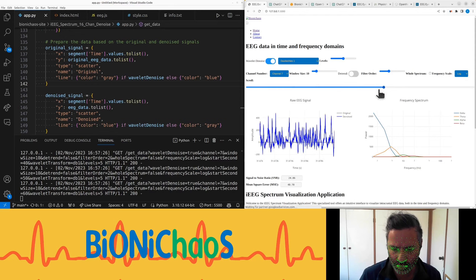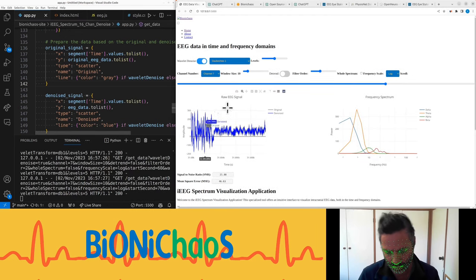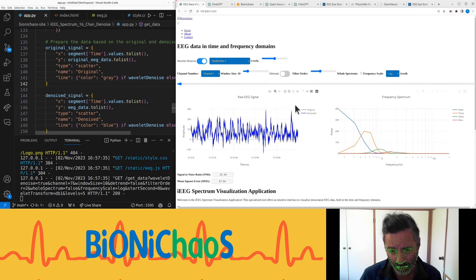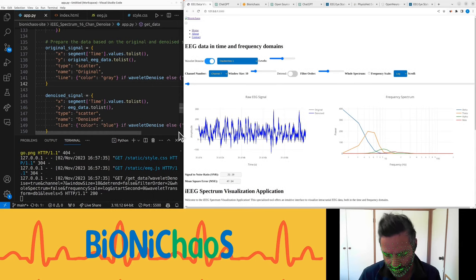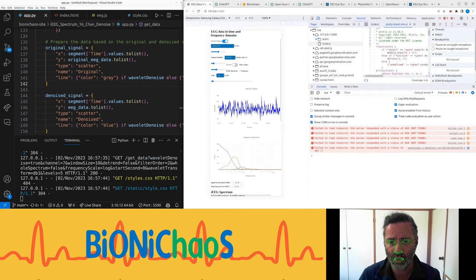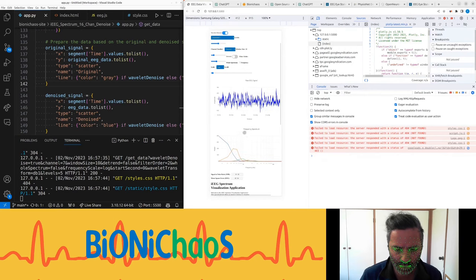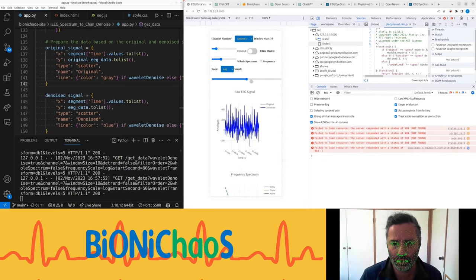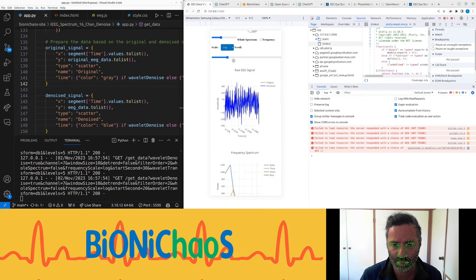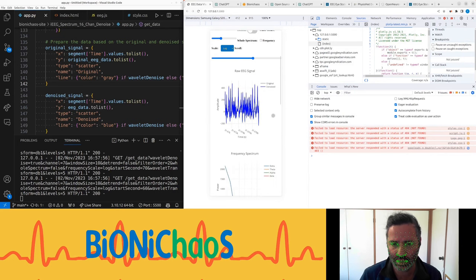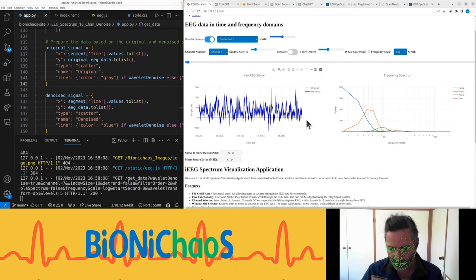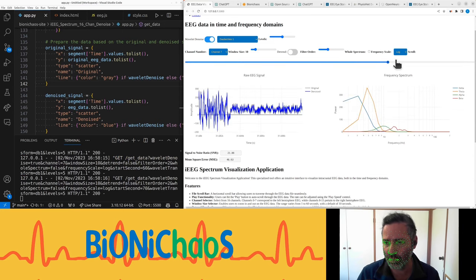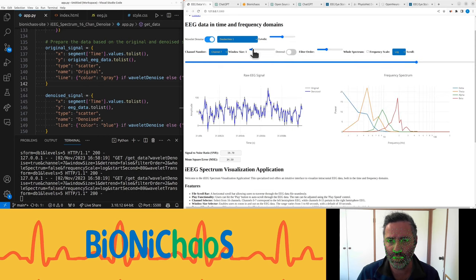Made some more improvements earlier today. When you have a large screen it now will display the two charts - the raw EEG signal and the frequency spectrum - side by side. When you have a narrow window like on the phone it will display them top to bottom. Yeah, it should look like that and then not all of it fits this screen which is a bit annoying. I'm mainly testing on desktop so yeah if you have any ideas how to improve this for a mobile phone please do let me know.